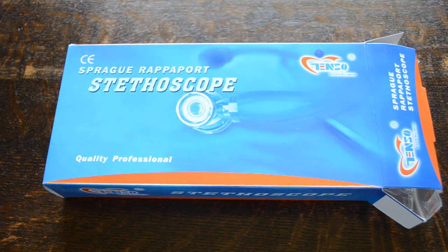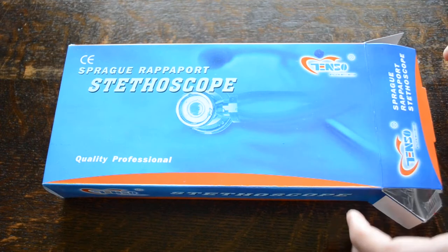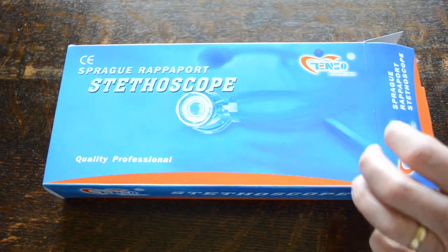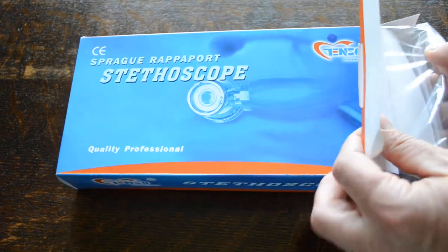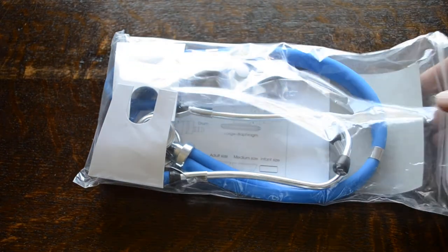Welcome to this presentation. We're going to show you the Valumed Sprague Rappaport stethoscope manufactured for us by Tenso. You'll see this is a CE mark certified medical product. To remove it from the packaging, this is the blue tube stethoscope version.